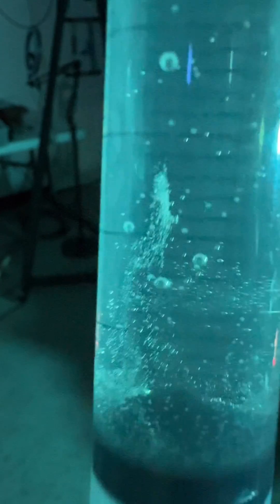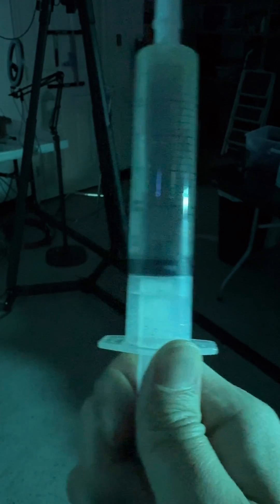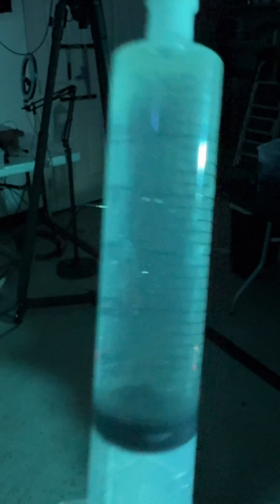This is what hemolyzes the blood samples. You don't want to apply so much negative pressure that you're expanding the cells enough to hemolyze the samples. Apply as gentle a negative pressure as possible — not hard negative pressure. This excessive negative pressure is what's causing hemolysis, and of course you're going to get bad results, which leads to bad clinical decisions.